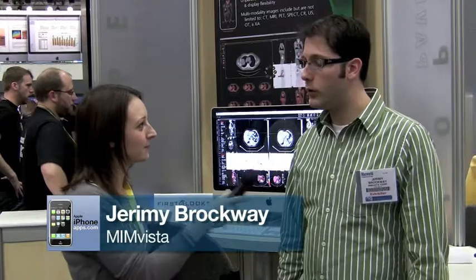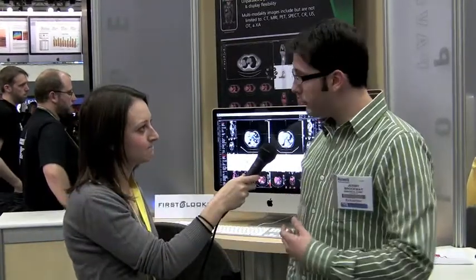I'm standing here with Jeremy from MIM Software. Can you tell us a little bit about your application? Sure. So we sell our application suite called MIM, and we're currently pushing for the MIM 5.0 release, which will be cross-platform — the first ever launch on the Mac platform. We're targeted mostly towards radiologists and radiation oncologists.